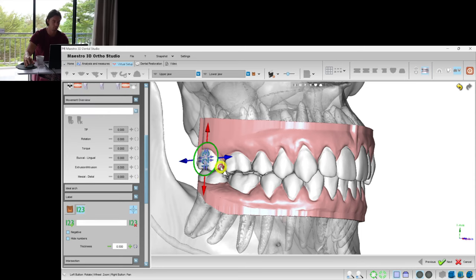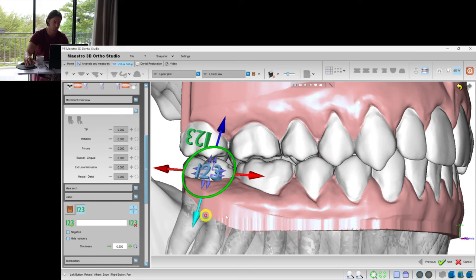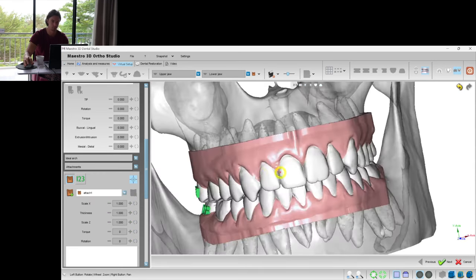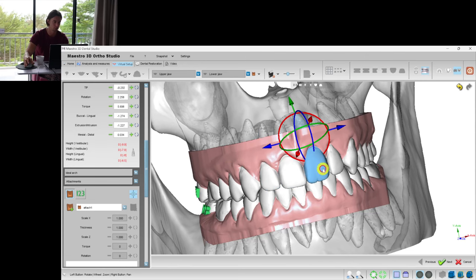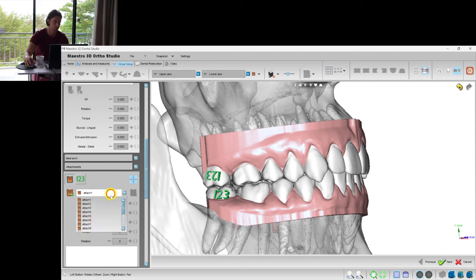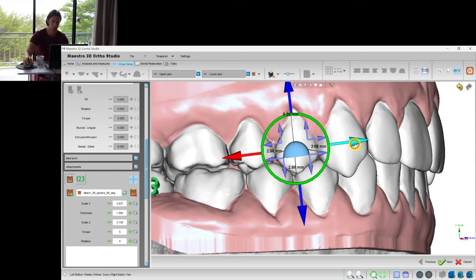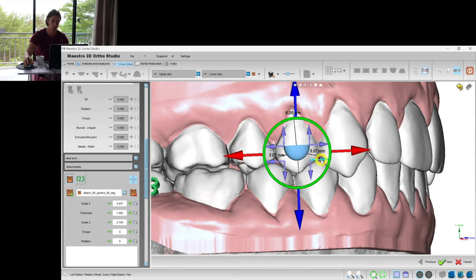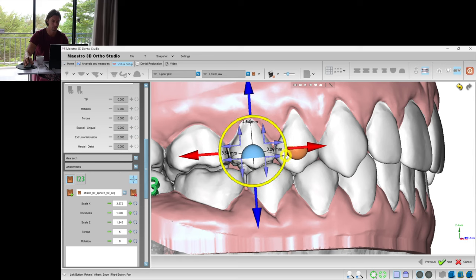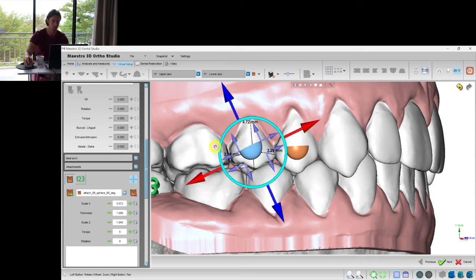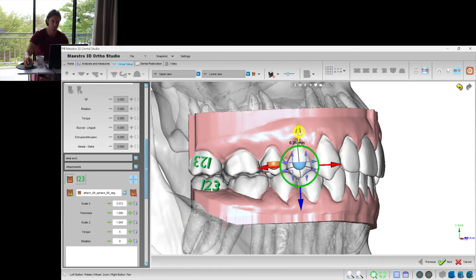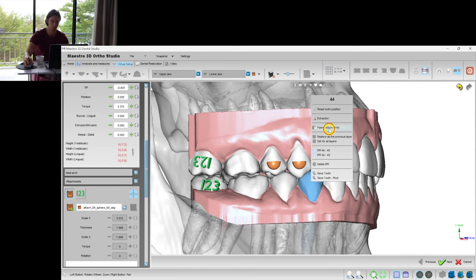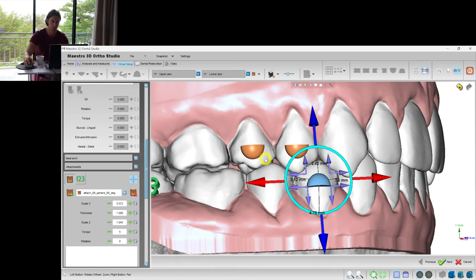Let's put the numbers in order not to mix the models after the 3D printing. And since we did some intrusion for all the incisors, we need to put at least 4 attachments for retention. I use this shape. Put them in the same line.